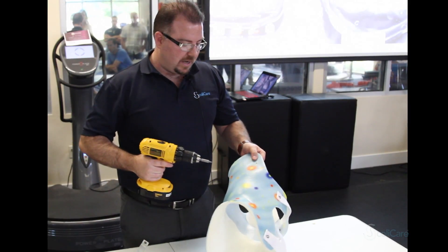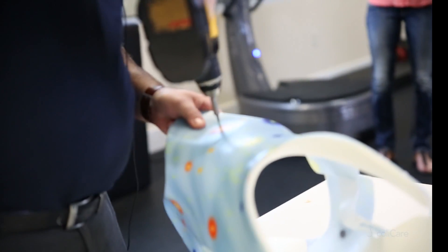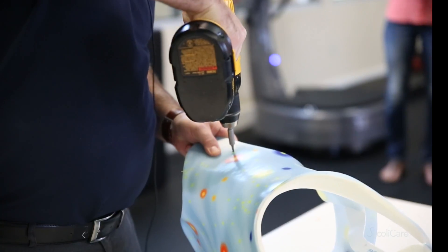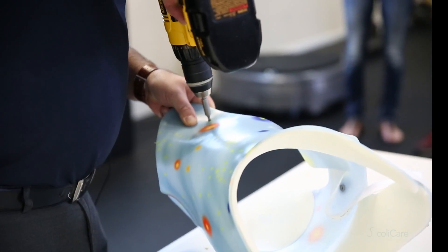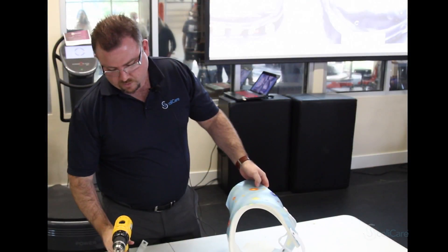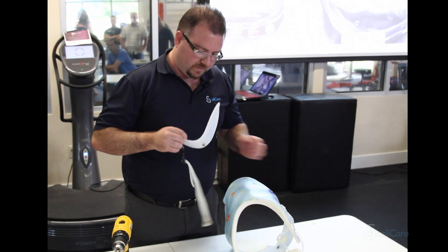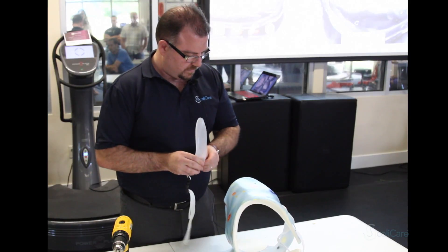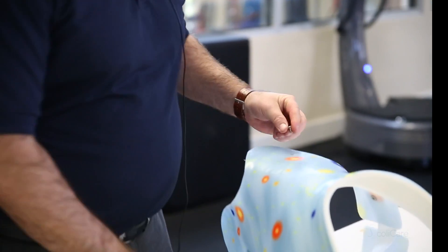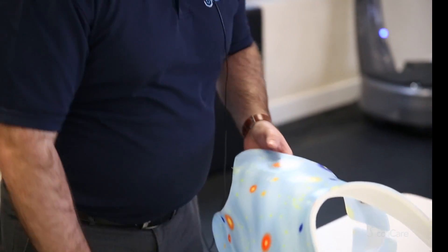Once we have the arm hole drilled, we just drill it through here like this. We want to make sure as soon as we drill that hole that the rivet fits. We can just test it from the outside. We need a slightly bigger hole, so we will just go to a bigger bit.